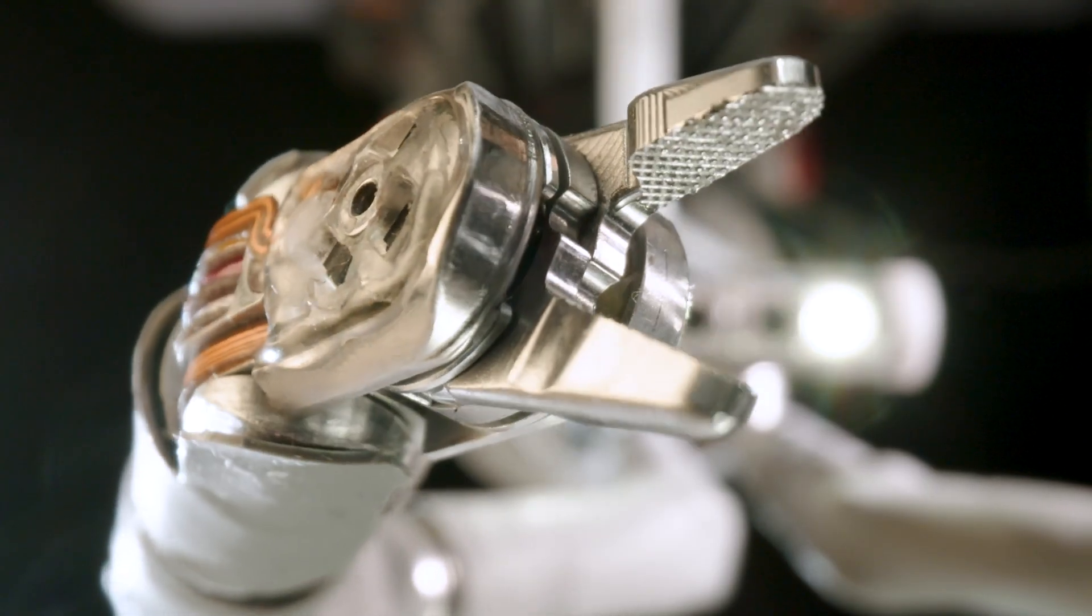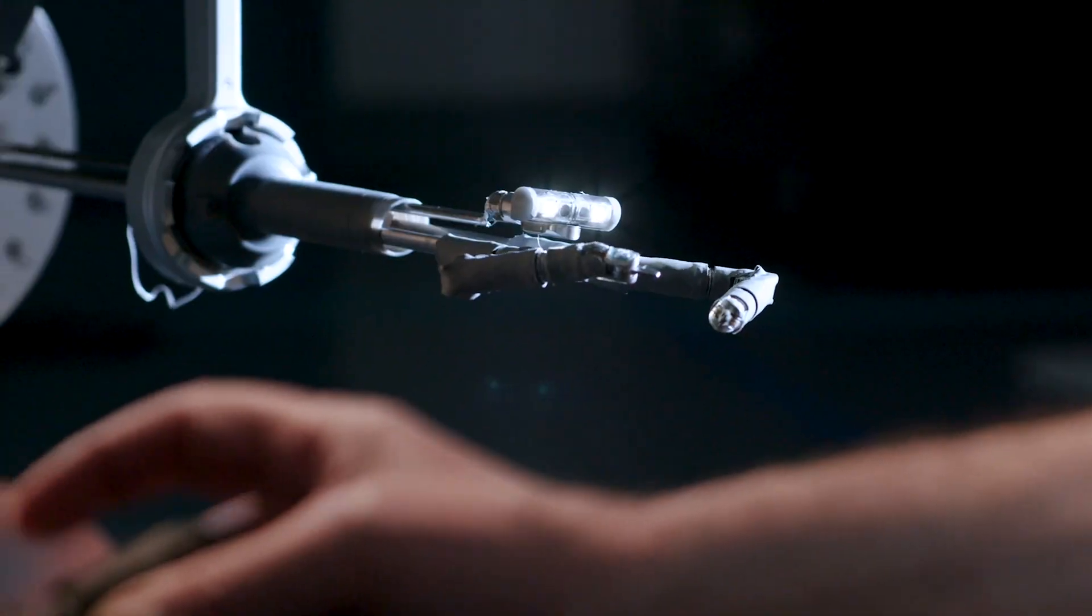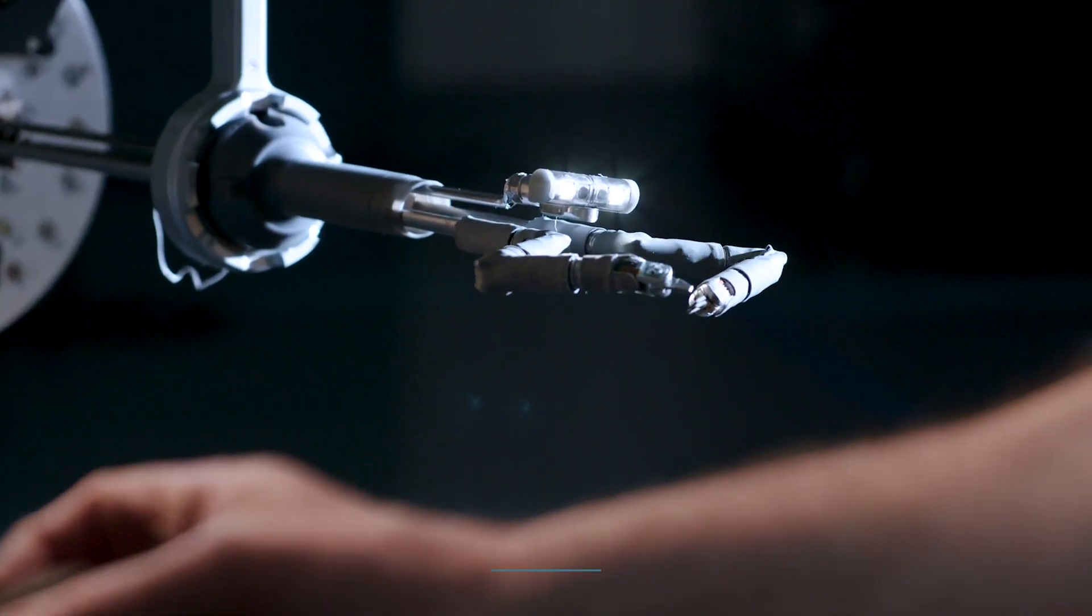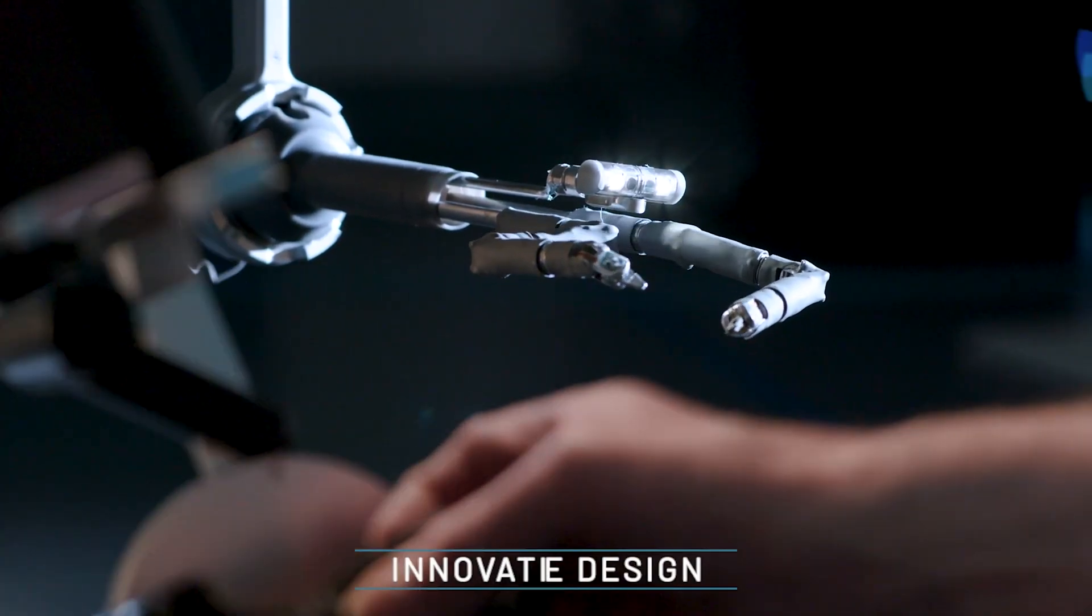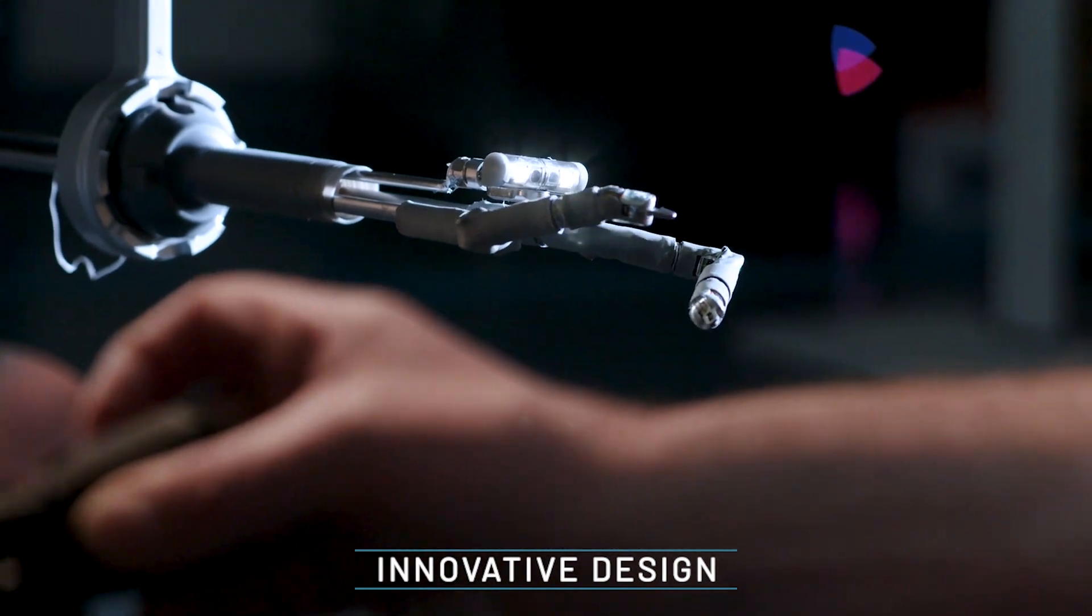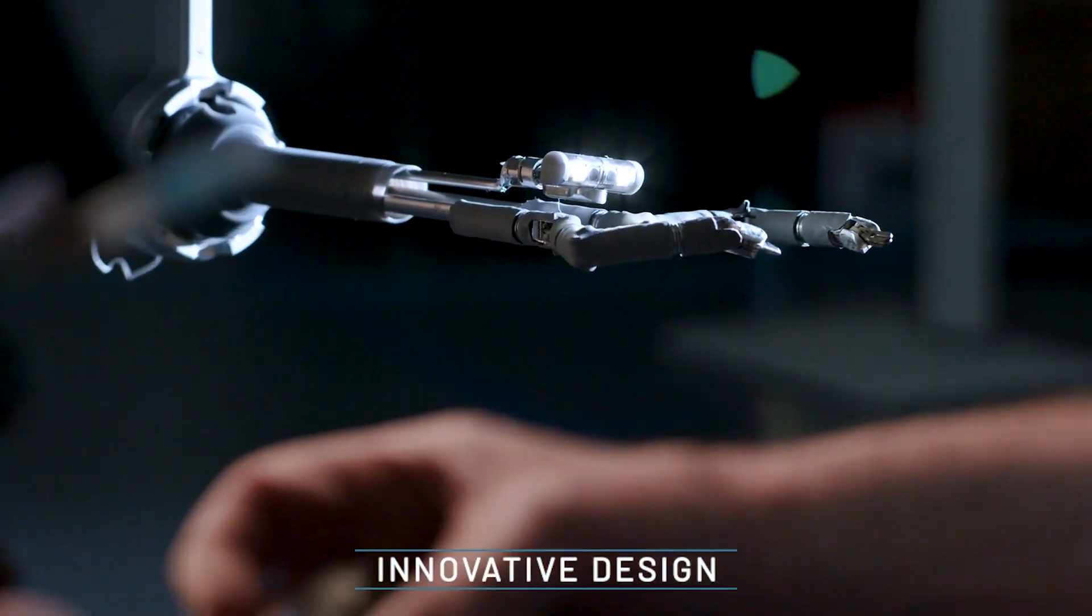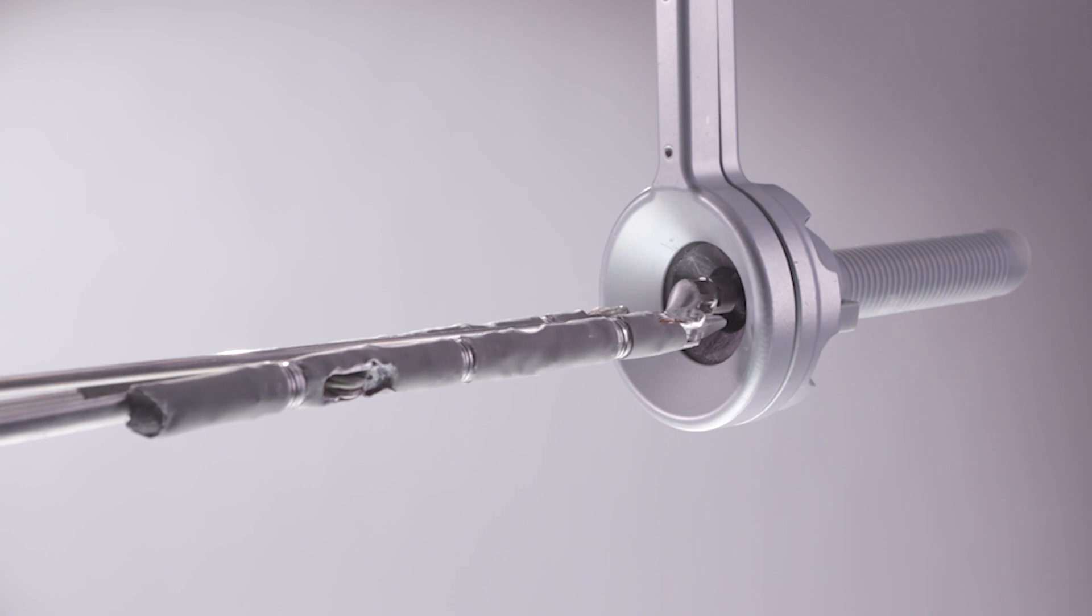The very core of our innovative technology is our proprietary decoupled actuator that has allowed us to re-engineer single-port robotics and redefine robotic motion with an impressive 9 degrees of freedom per arm.